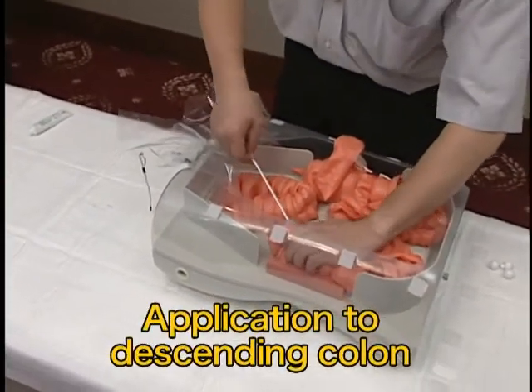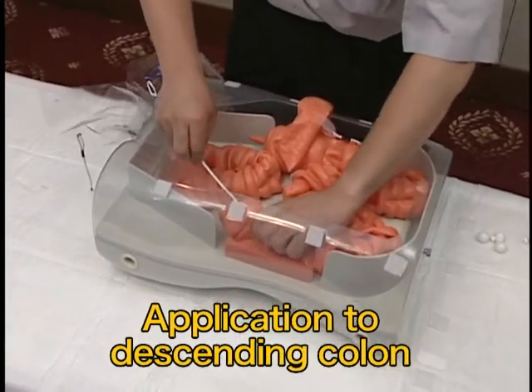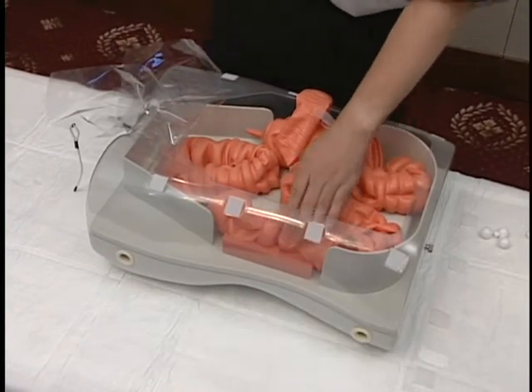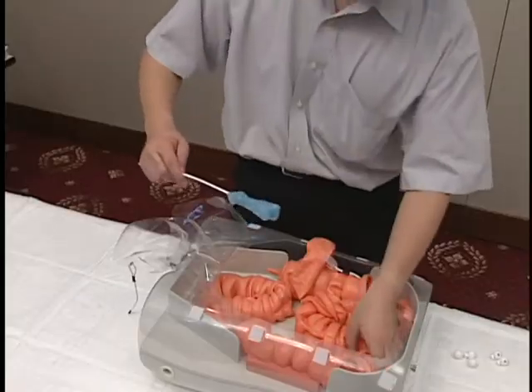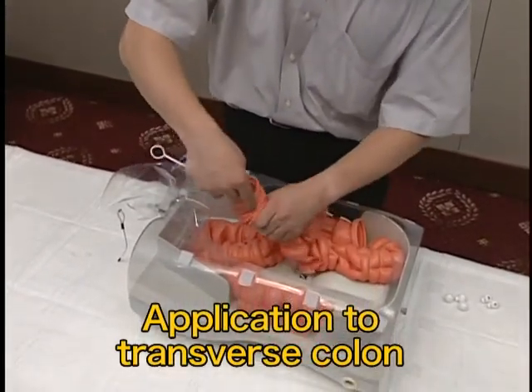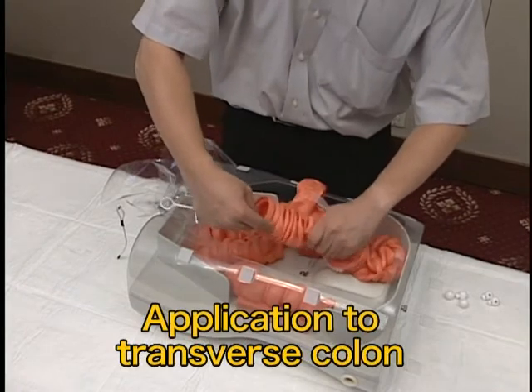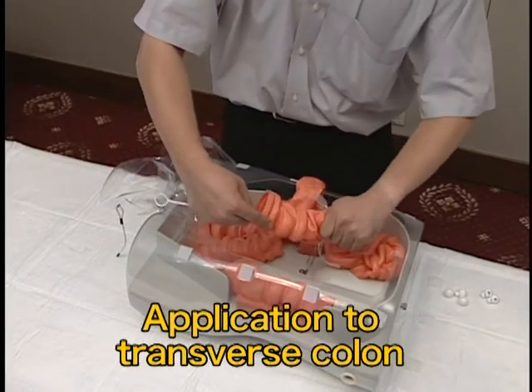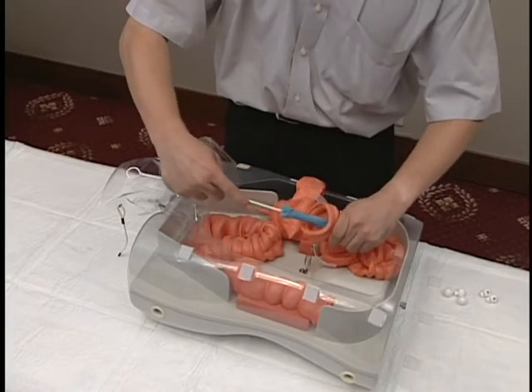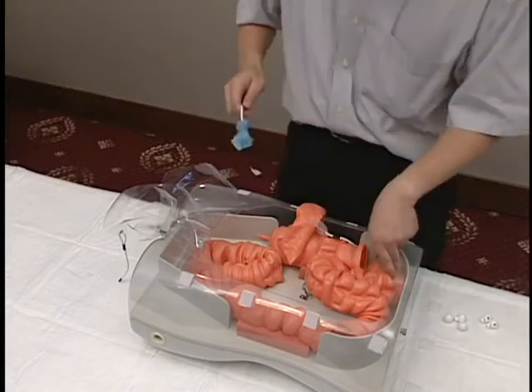Apply lubricating jelly to the descending colon. Insert the sponge with lubricating jelly and massage the intestine so that the lubricating jelly is spread over the entire intestine. Insert the sponge with lubricating jelly to the midpoint of the intestine, and withdraw the sponge little by little while massaging the intestine so that lubricating jelly is spread over the entire intestine. Repeat the same procedure from the opposite side.